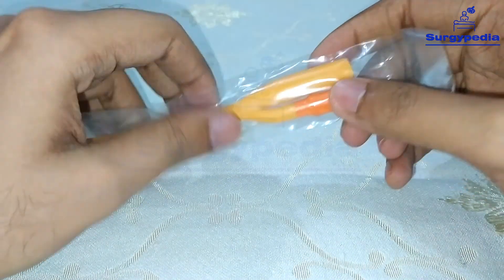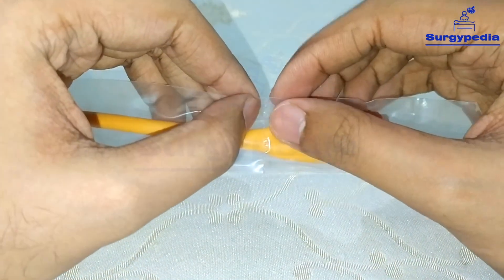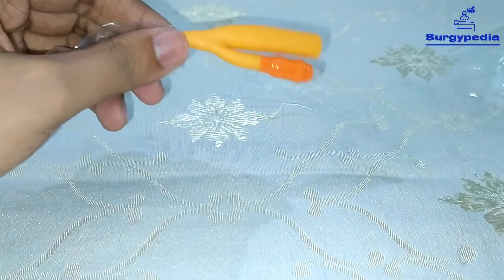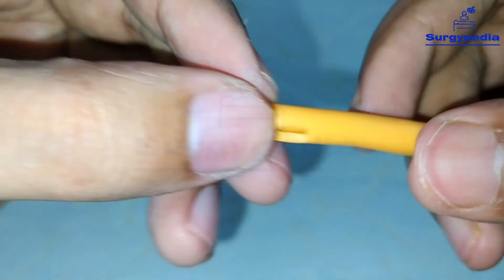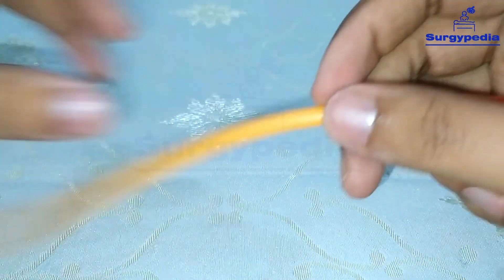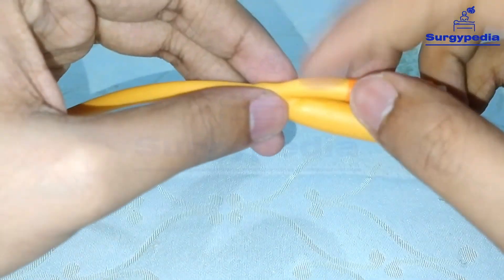Here I am not maintaining asepsis, but in the real world you must maintain asepsis when taking out the Foley's catheter — otherwise inserting an unsterile Foley's will cause infection. So we have opened this and taken the catheter out. This is the Foley's catheter. This is the tip — it is blind but has holes on the side for urine to flow through. This is the other end: the main channel is for draining urine, and the side channel is for inflating the balloon.